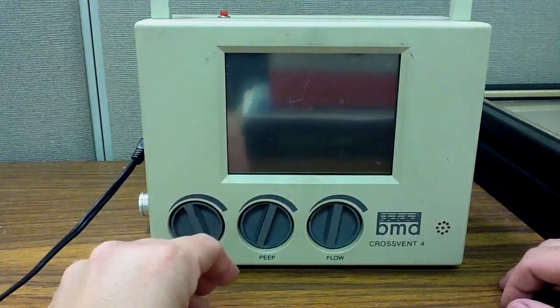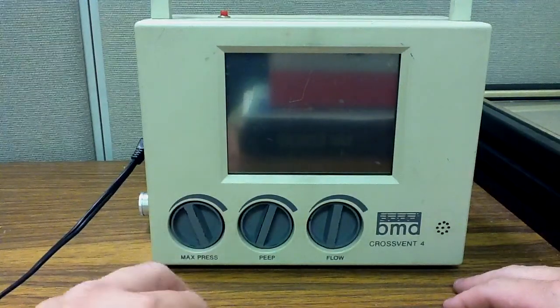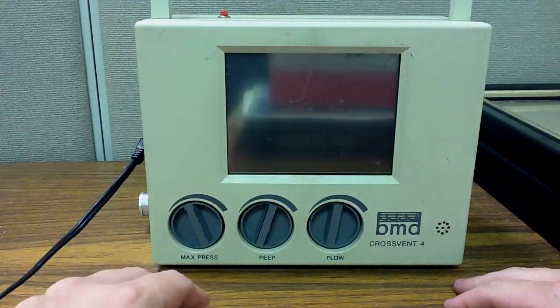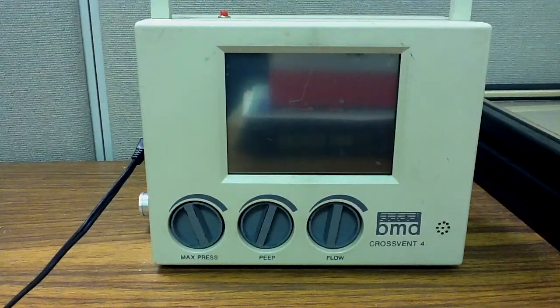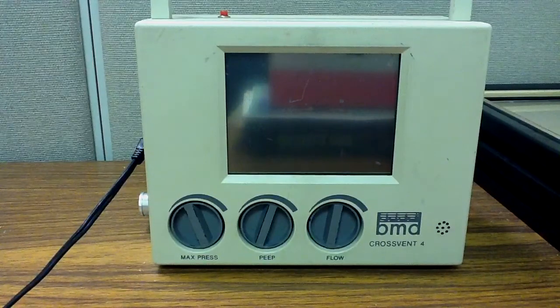So today I'd like to talk about another type of transport ventilator. The reason I'm doing this is I had some questions from a friend in South Africa that they have transitioned to this specific ventilator.